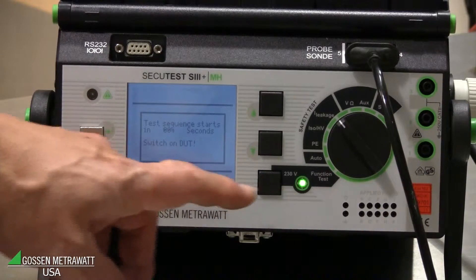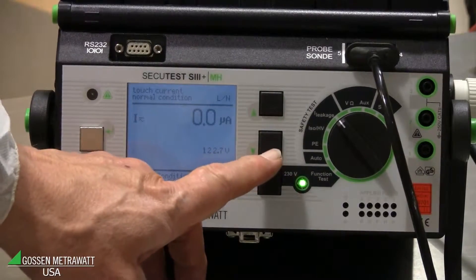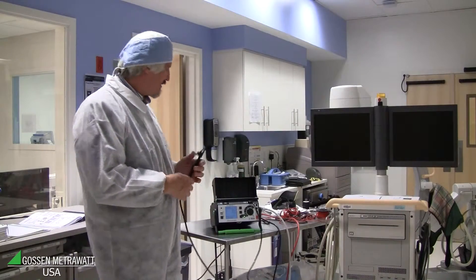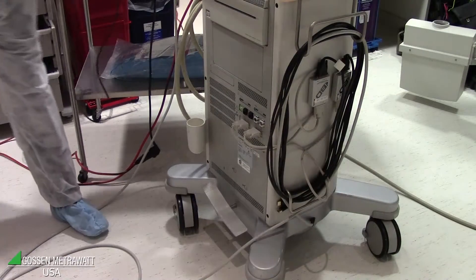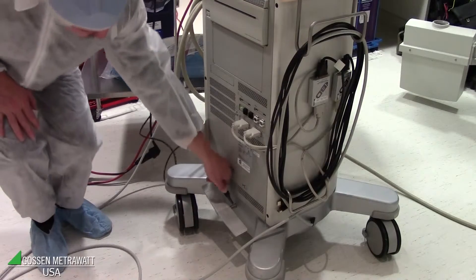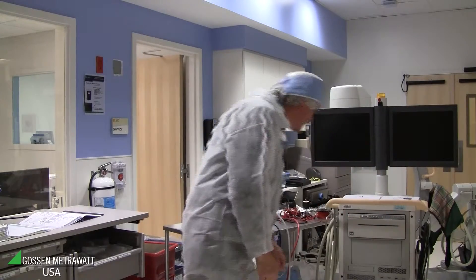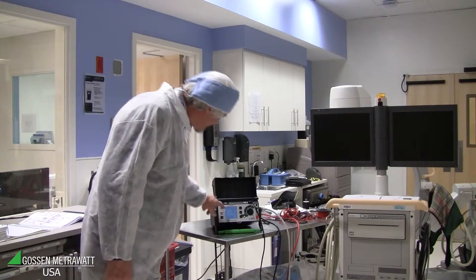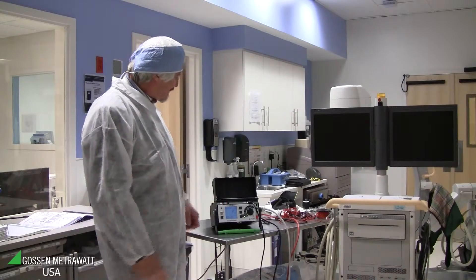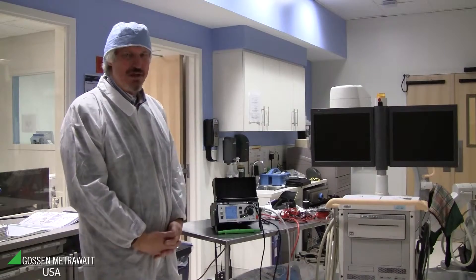To view AC and DC separately, just push the button and you see both values. It's zero because the probe is not yet connected. To measure the touch current we connect the probe on the housing of the equipment — for example, a good place is down here on the housing. You can see touch current is near zero because the equipment is very well grounded.